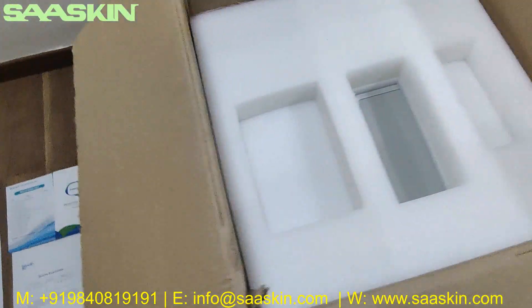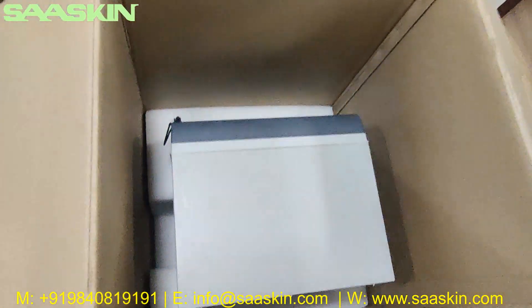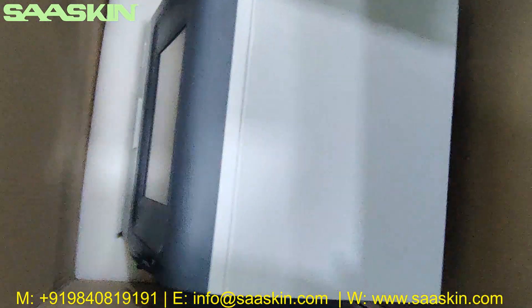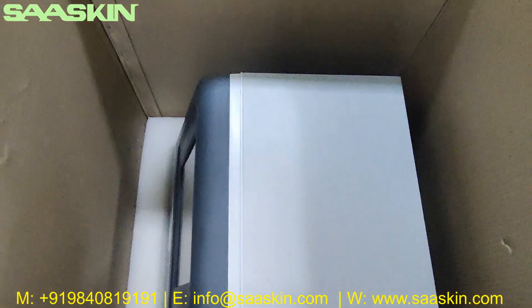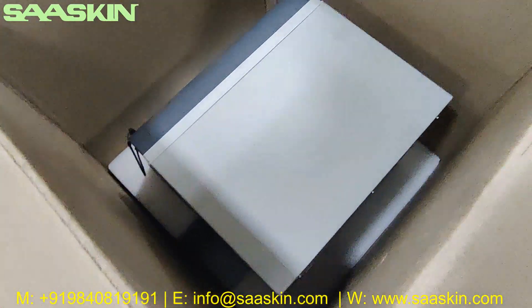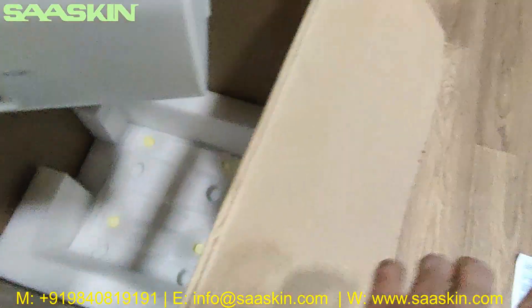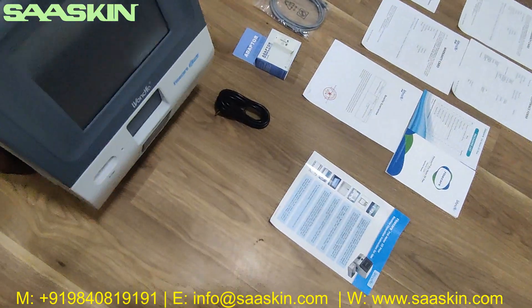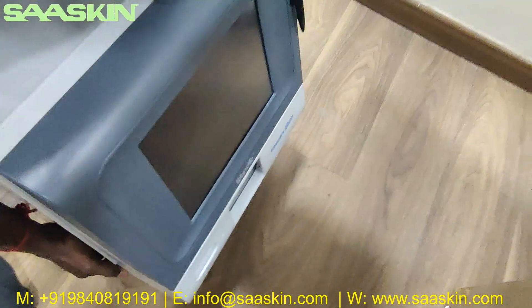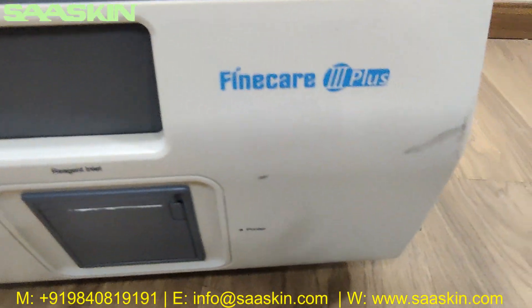There is another layer of safe packing — I'm pulling this off. Very nicely packed! Here you go, the machine is here. I'm going to take the machine out. Here's the machine — you can see it says Fine Care 3 Plus on it.